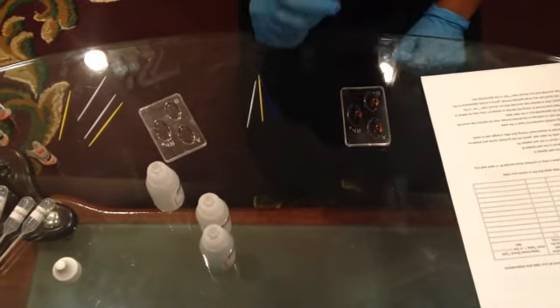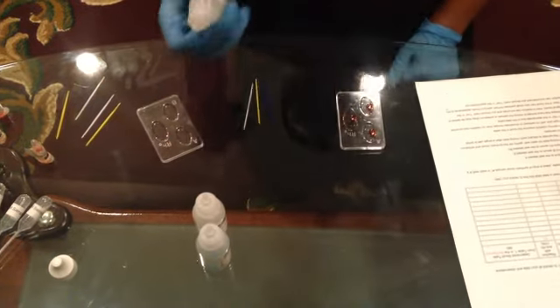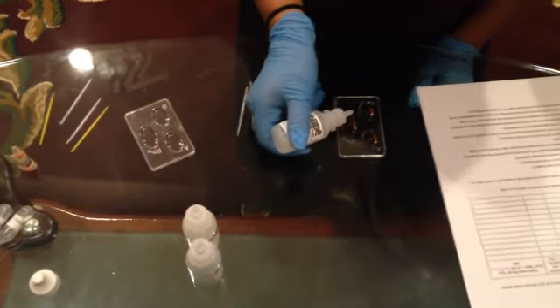And to do exactly what I did before, I'm going to add anti-RH serum to the well labeled RH, which is for the additional factor. And since I'm done doing this, I'm going to mix it again gently for 30 seconds to record the reactions.